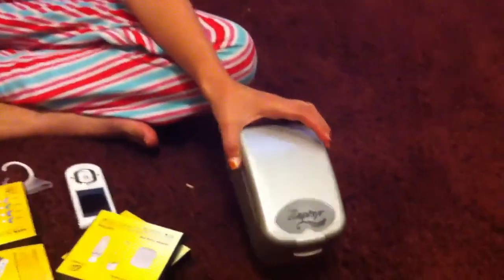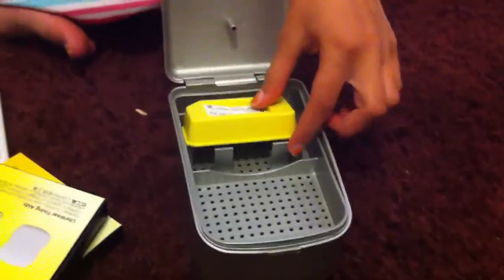These are some of the things that came with my implant. This is what I put it in nightly — that is to clean out the cochlear implant and get all the moisture out of it.